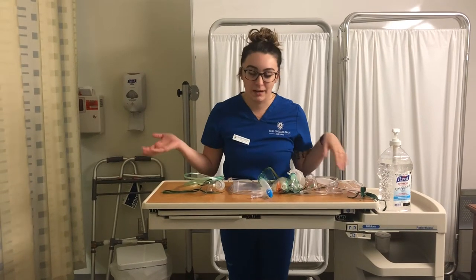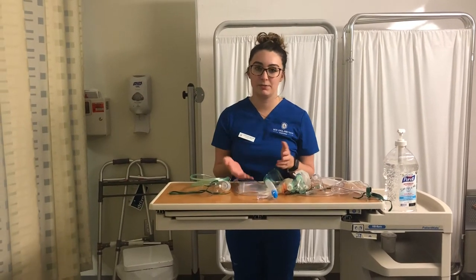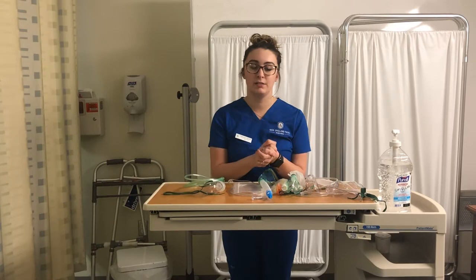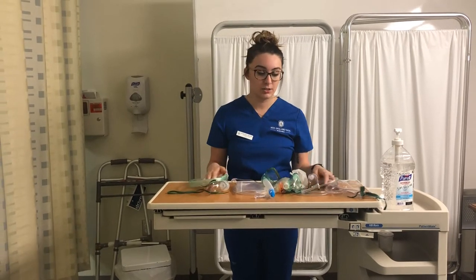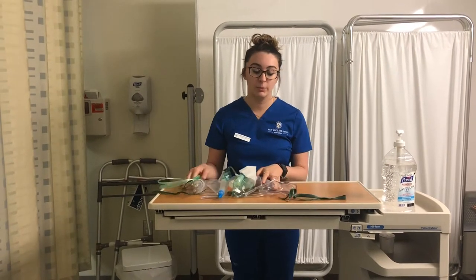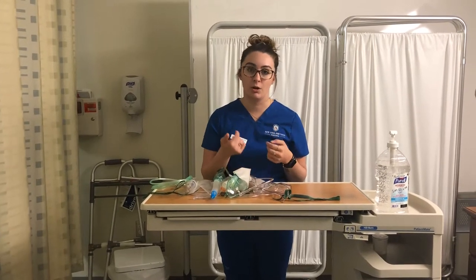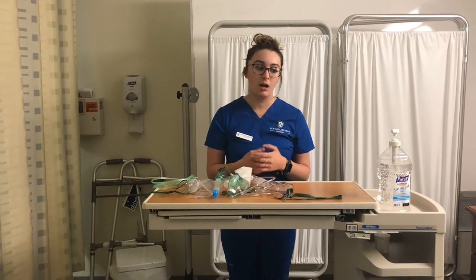Hi, my name is Jamie. I'm going to go over the different types of oxygen masks and different types of administering oxygen. First and foremost, when administering oxygen, you would always check for a doctor's order.